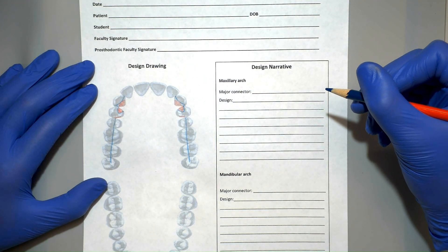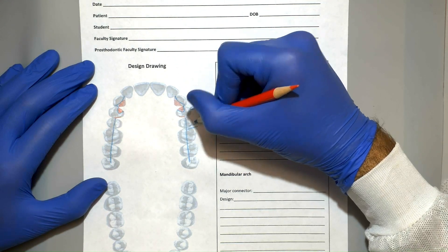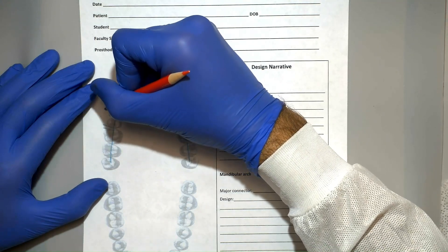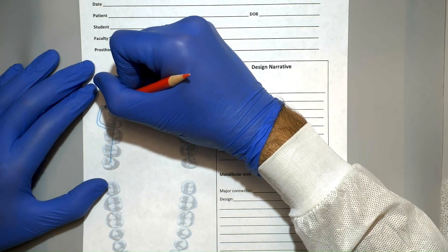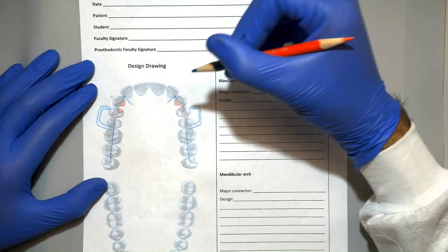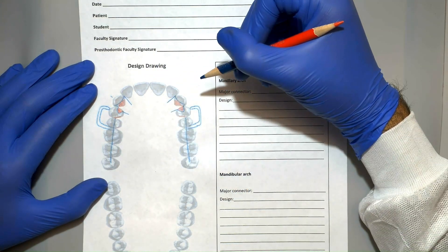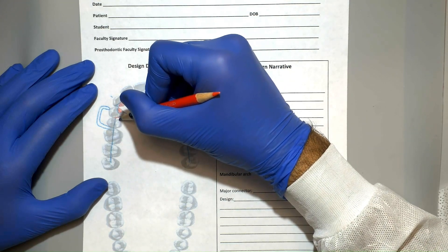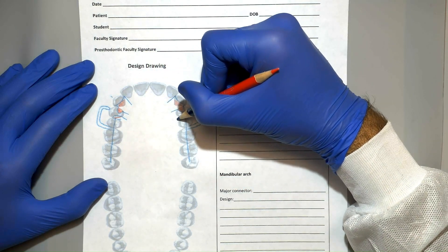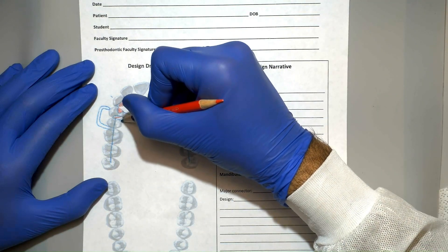We will then go ahead and start drawing the retentive clasps on each of those abutment teeth. When drawing I-bar clasps, it's important to remember that the origin of the clasp starts in the lattice one tooth away from the tooth being clasped. Now let's start drawing some minor connectors. We're going to draw a straight line coming down from each edge of each rest seat. We'll also draw minor connectors coming down from each guide plane. The last minor connector next to the edentulous span will be extended all the way back to the hamular notch, as this will represent our finish line.